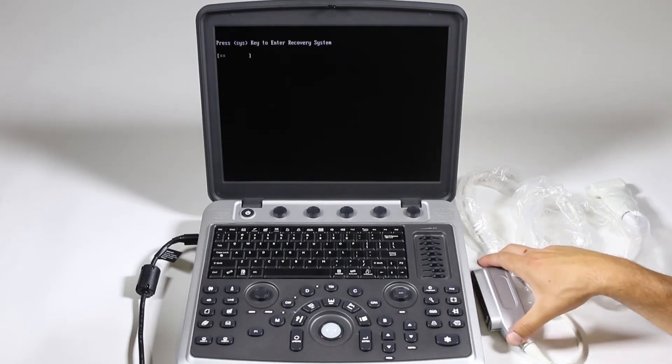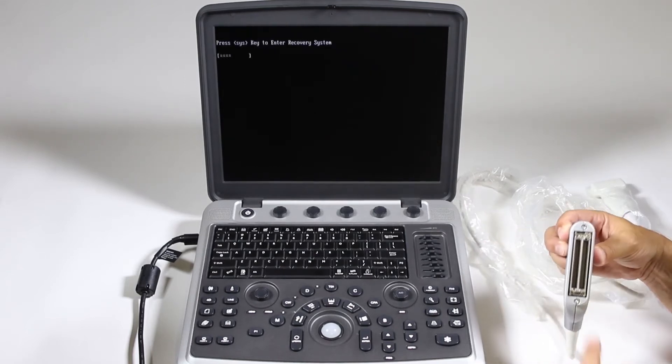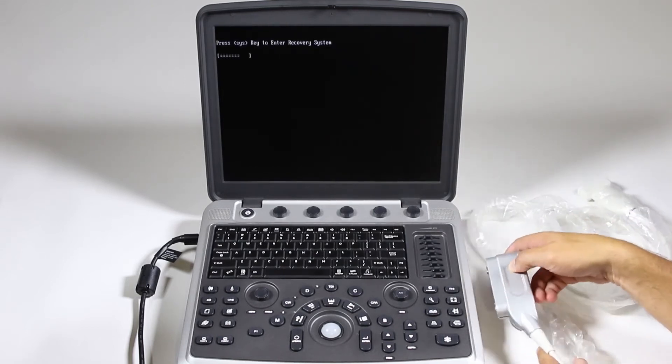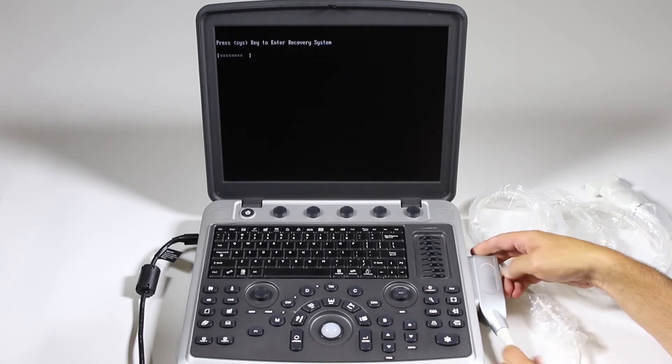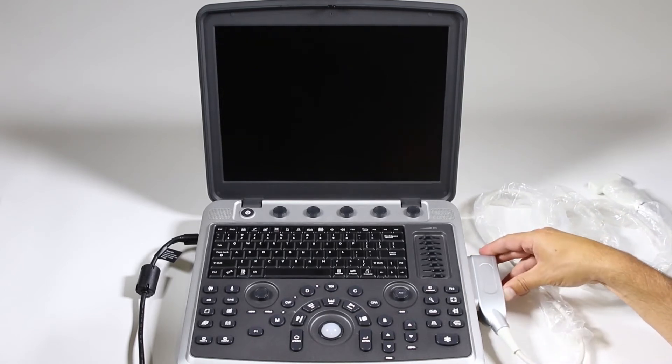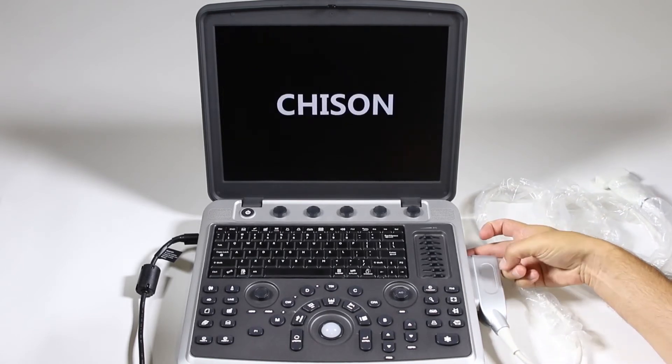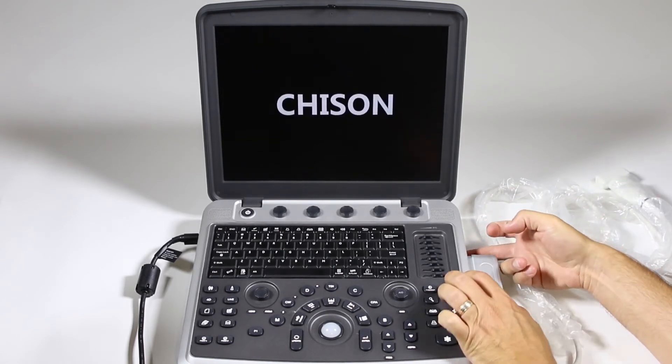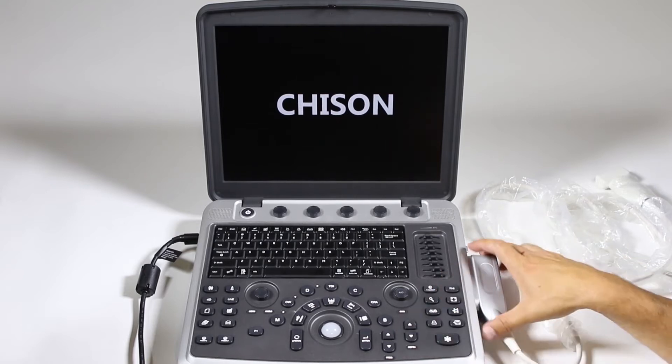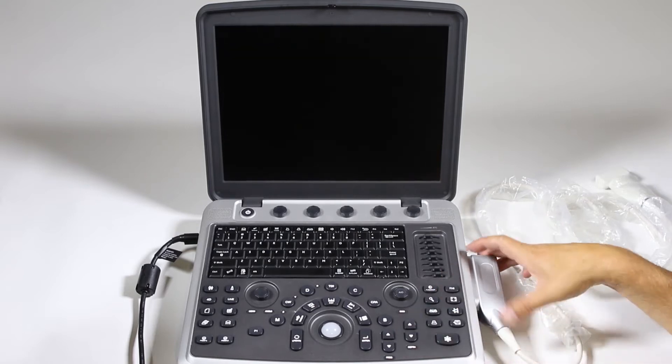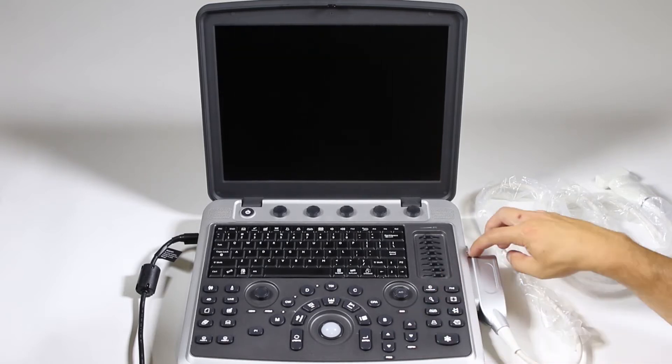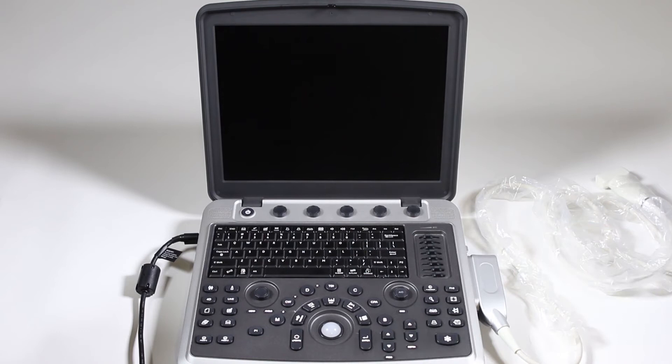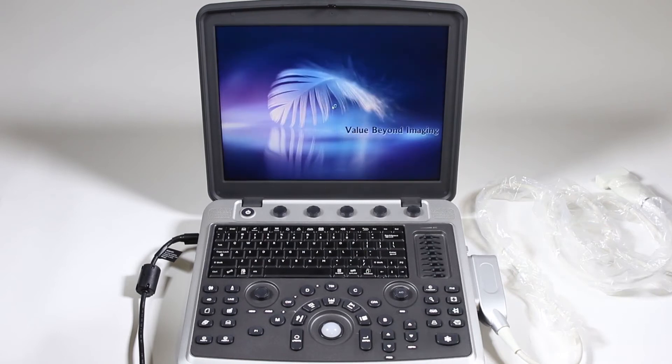While it's doing that, we'll go ahead and connect the probe. The cable faces forward. Slide it in so it's secure, and then pull up on this locking mechanism back here. Make sure it's secure and that it's even. If it's crooked, you don't want to pull up on that locking mechanism just yet.